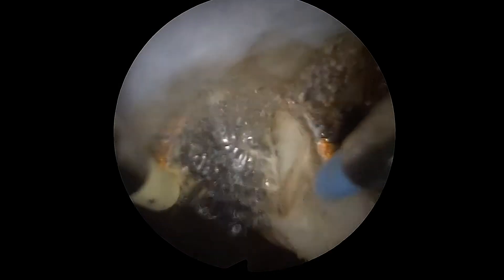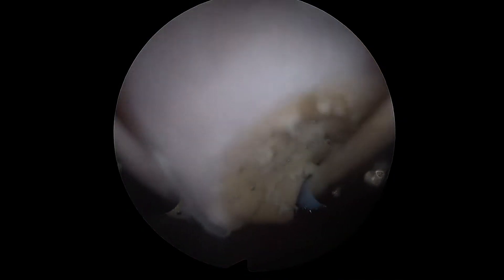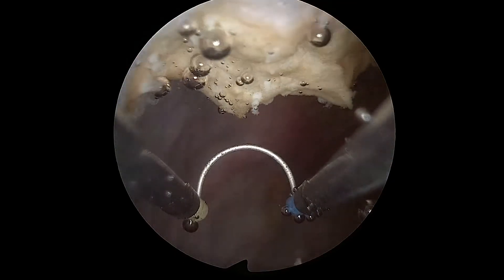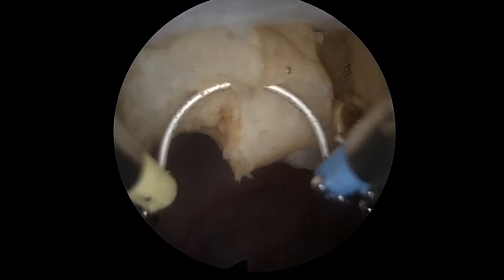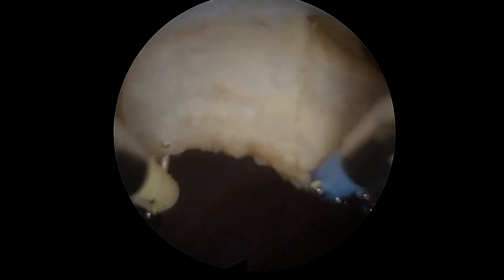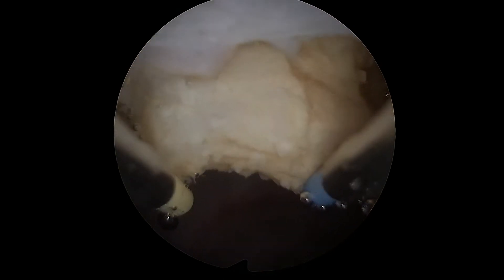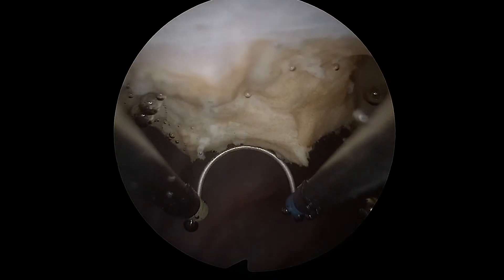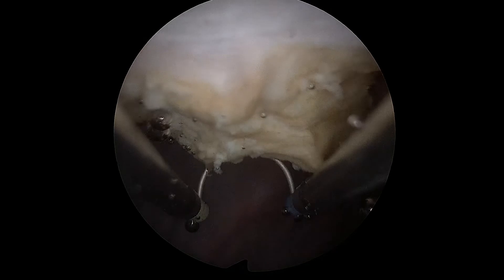Fibroids can be placed to mimic a range of types 0 to 3. Gynosim laparoscopic myomectomy models offer highest fidelity simulation of laparoscopic myomectomy on fibroid types 4 through 8.